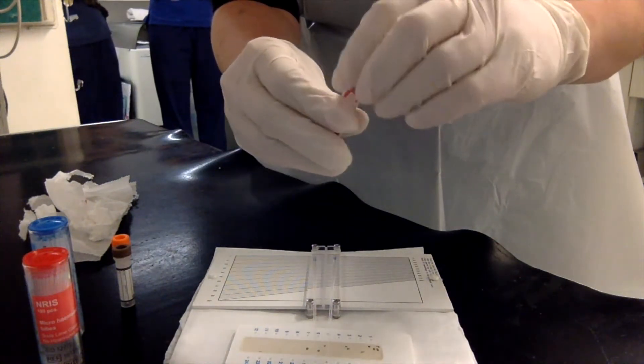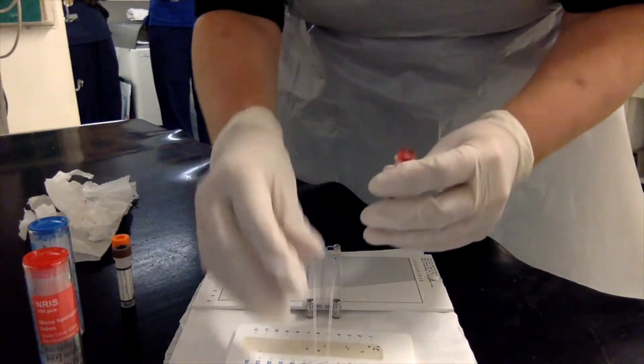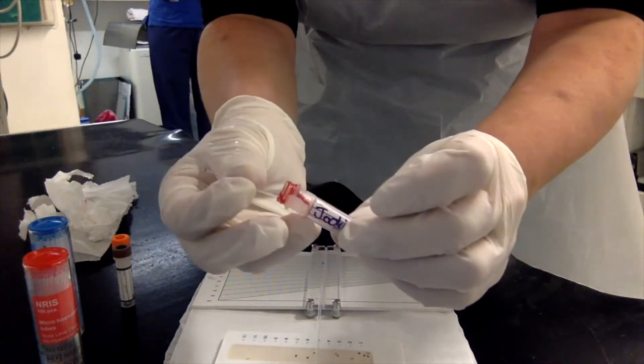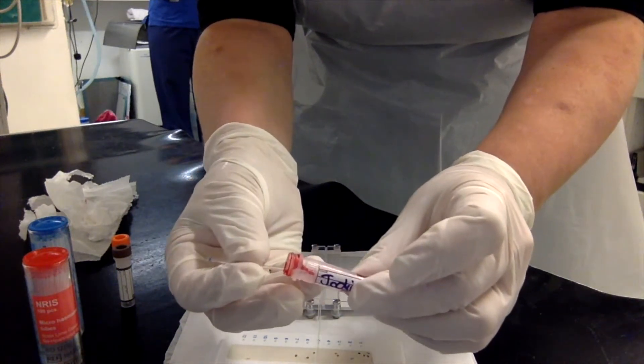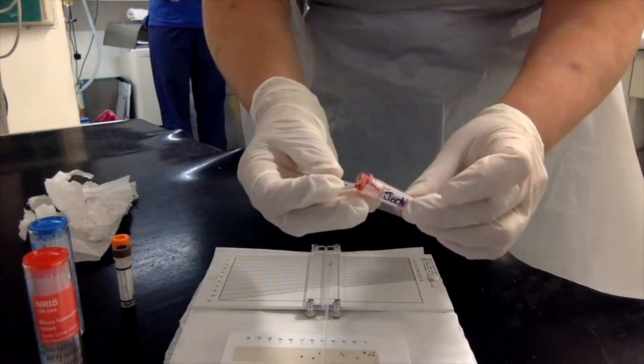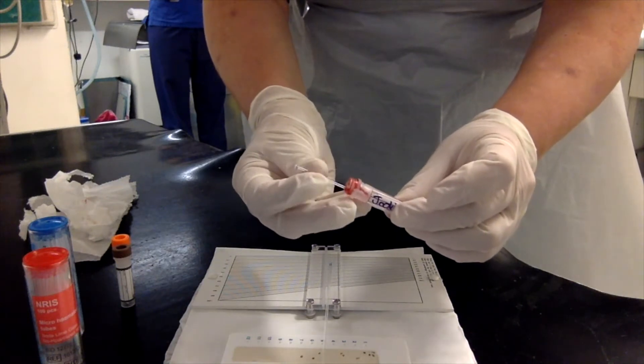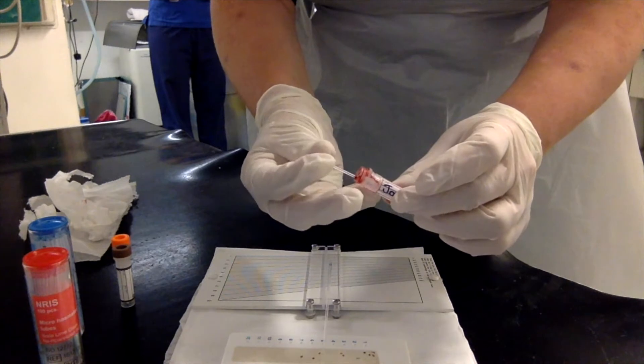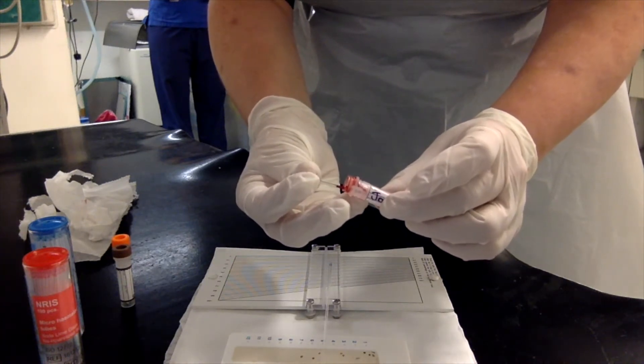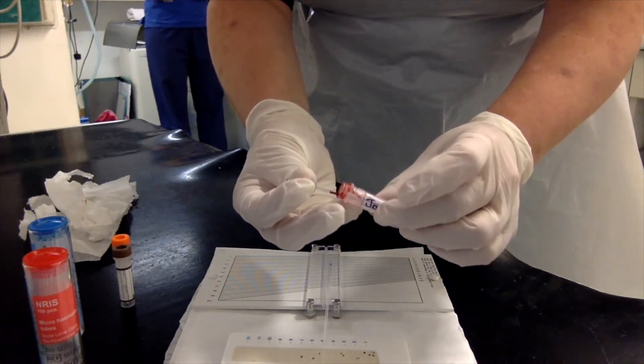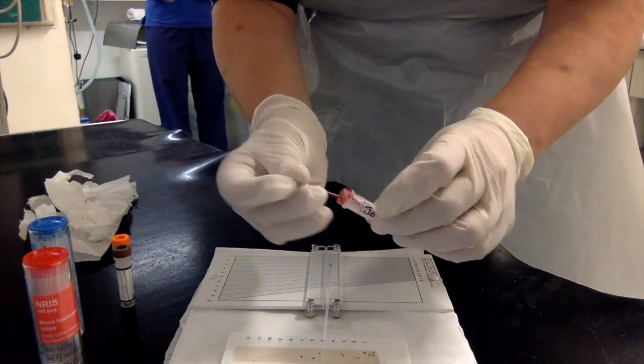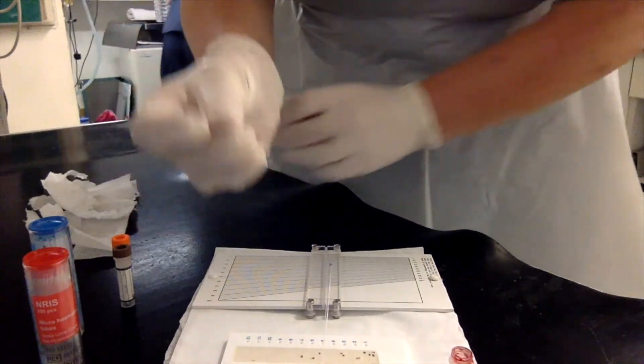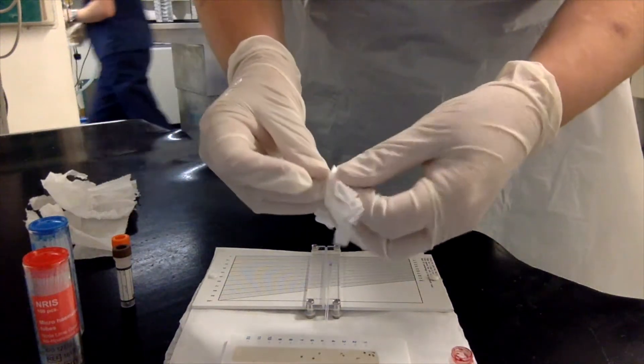Once the sample is fully mixed and you are ready to upload your sample, choose your plain tube. Put it in at a slight angle because you want the blood to slowly wick up the tube, and it needs to go about three quarters of the way up the tube so that you get enough sample for a reading that's going to make life easier for you. Note that I am using the holes on either side of the crystal seal to hold my tubes nicely in place.